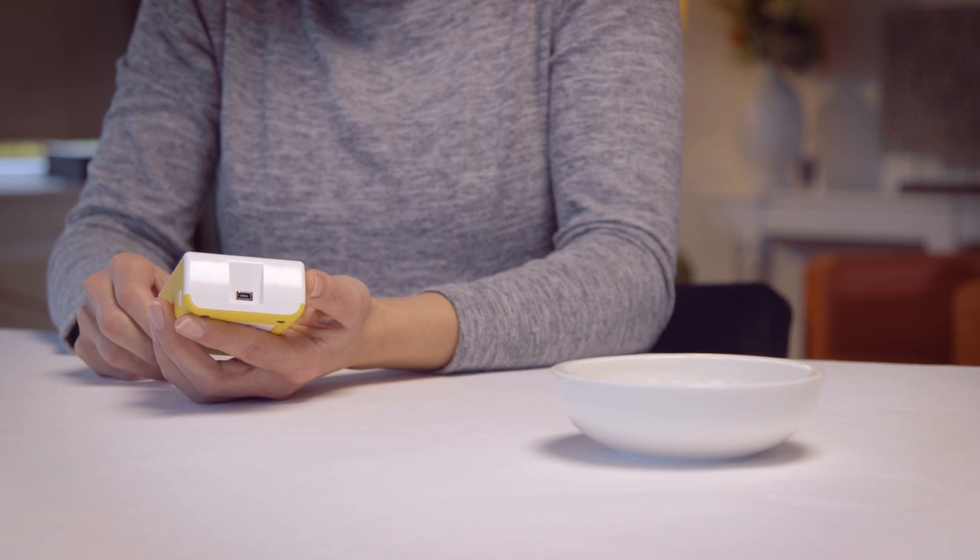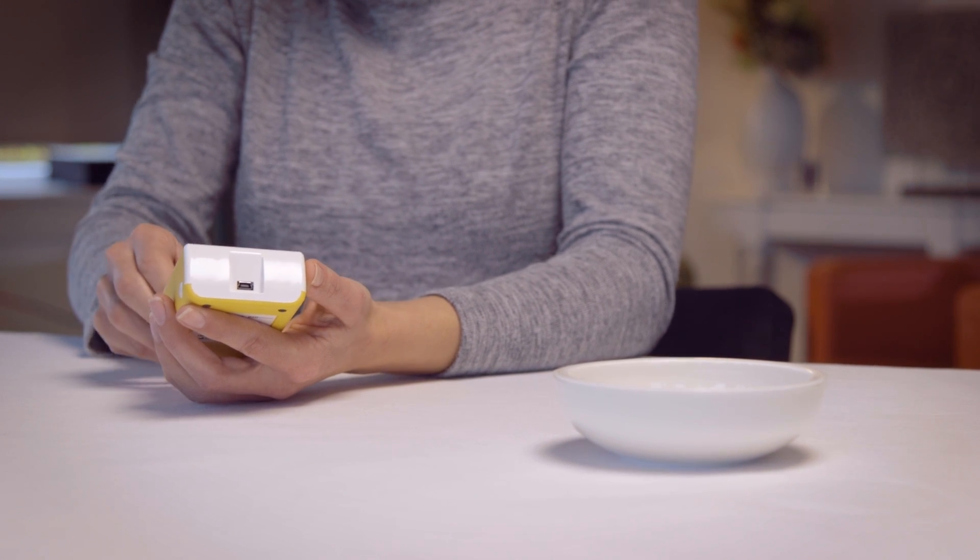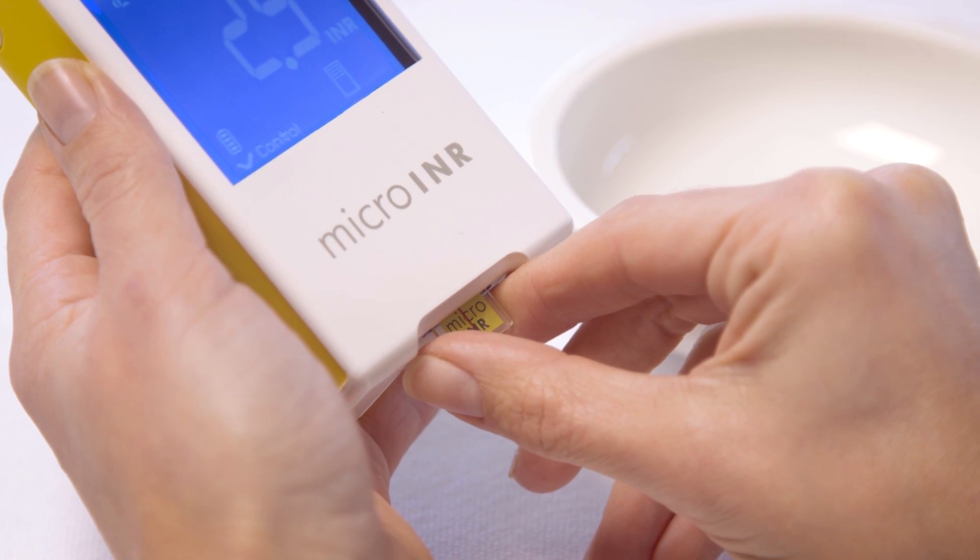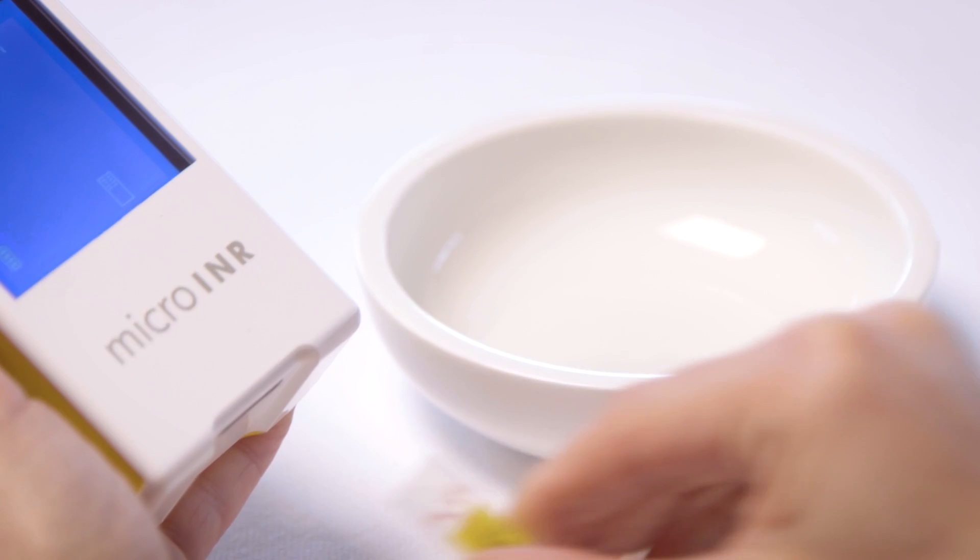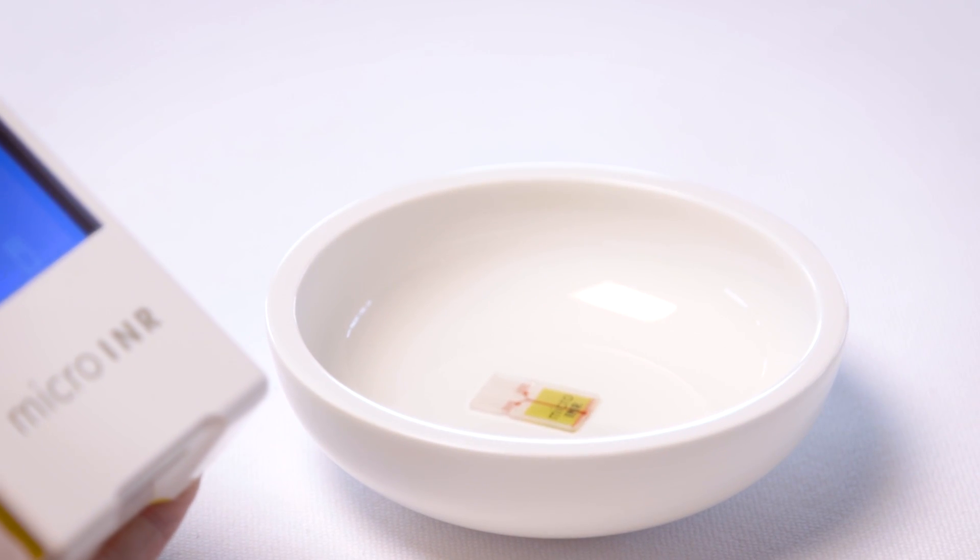Remove the chip before turning off the meter. The meter will automatically turn off after a couple of minutes of inactivity.